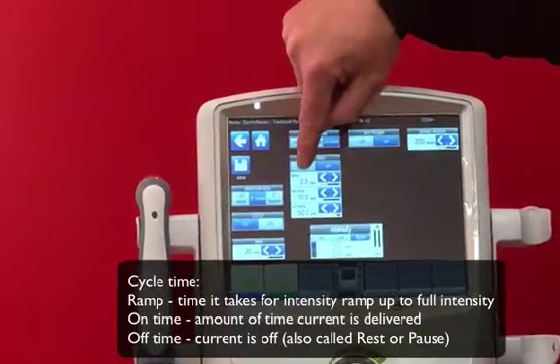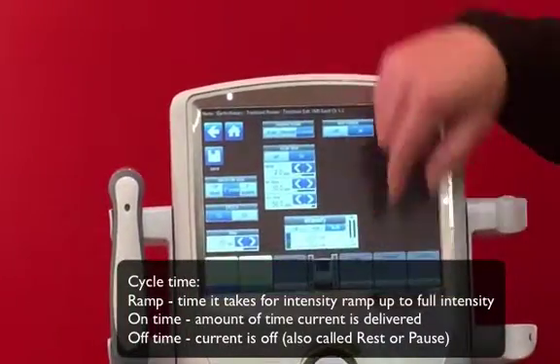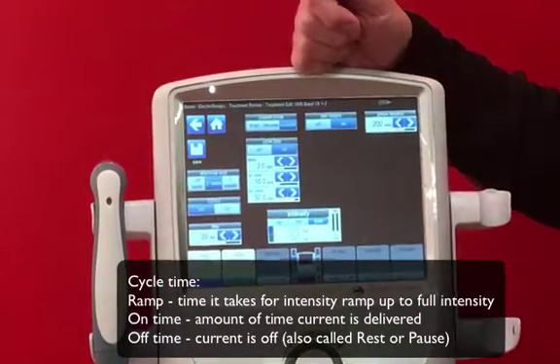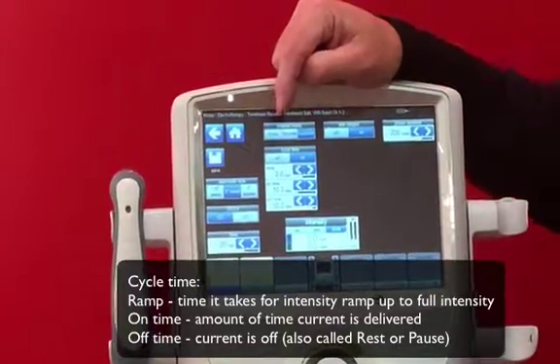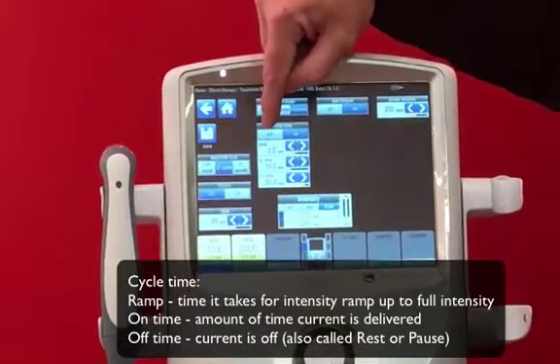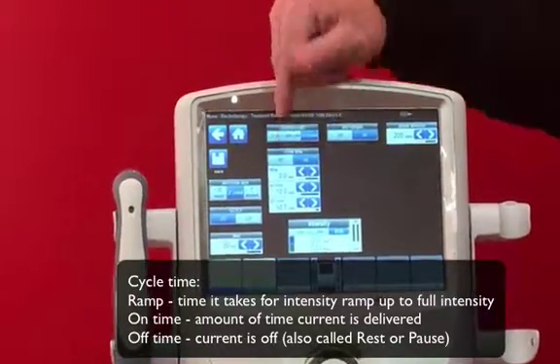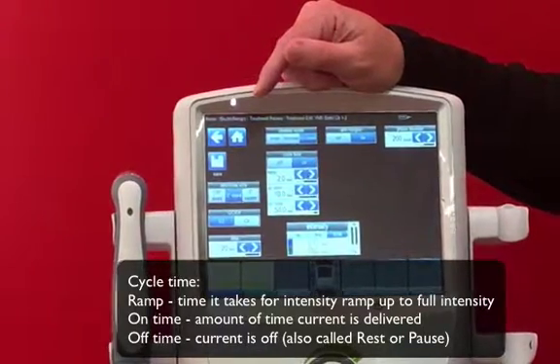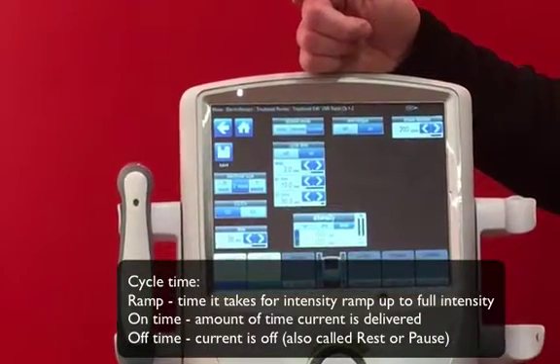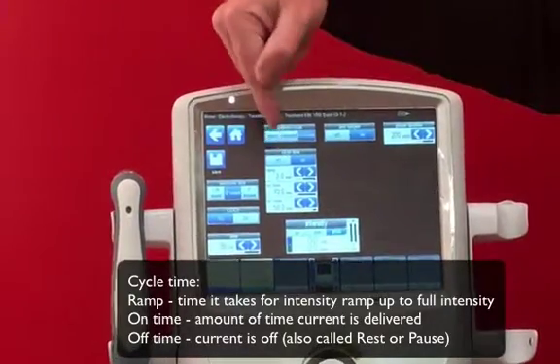Under cycle time, we have ramp — the length of time it takes to go from zero current up to the full current at whatever amplitude is set. A longer ramp time gives the patient an introduction to the current so they can better prepare. It can also be used as a biofeedback mechanism; for example, in a sit-to-stand, when you start to feel the current, you initiate movement so that by full current density, you're performing the activity. Setting ramp to zero means it goes to the highest current instantaneously, enhancing motor recruitment much more rapidly.